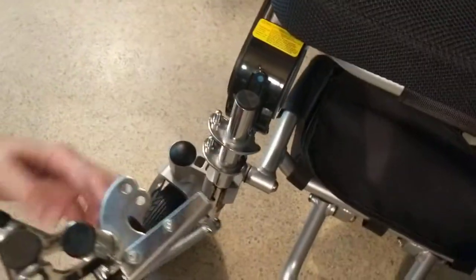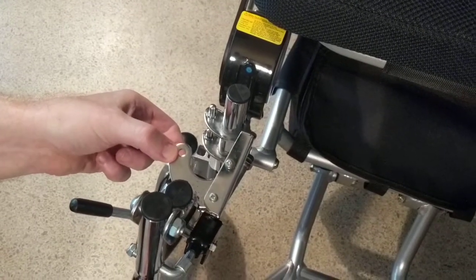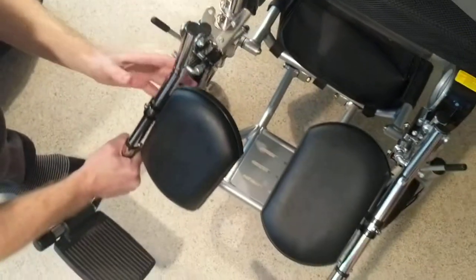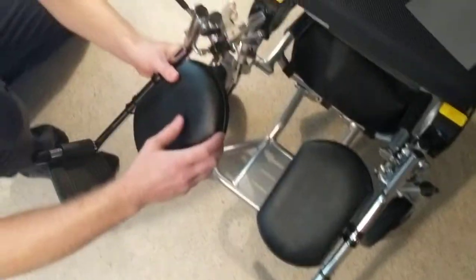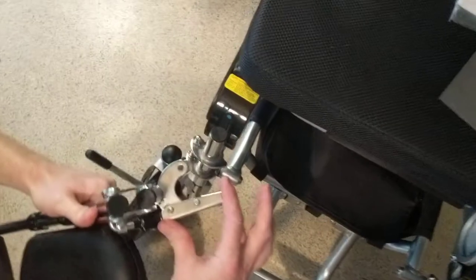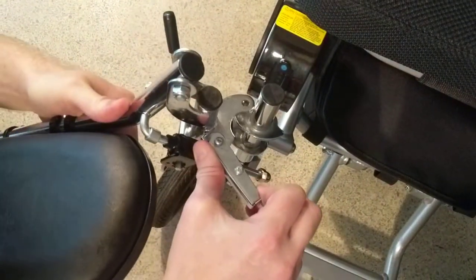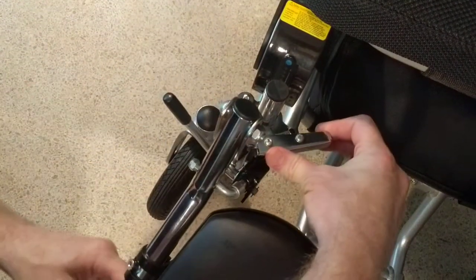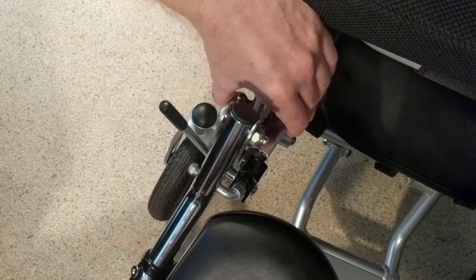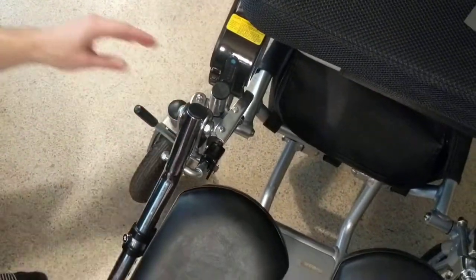This part always goes on the outside of the chair itself. Looking at the top, we can see that the leg rests are in their appropriate place. We have a latching mechanism that opens up here. I'm going to attach the pins, open the latching mechanism, and make certain that I have enough to hold this into place.